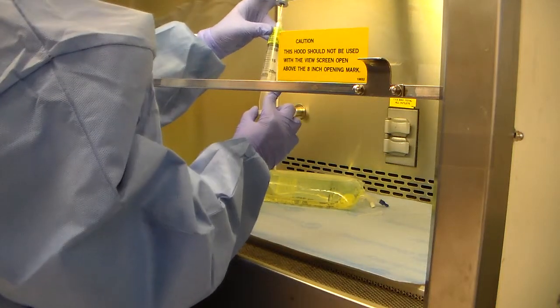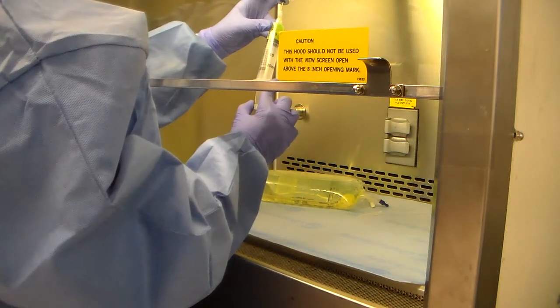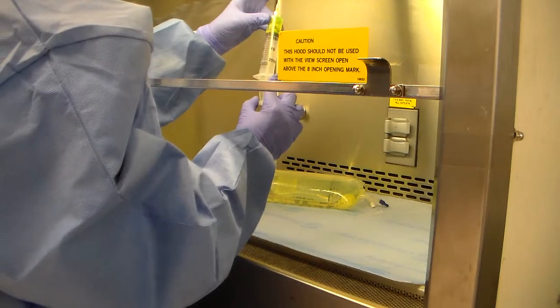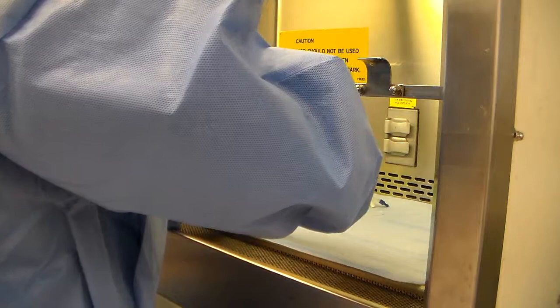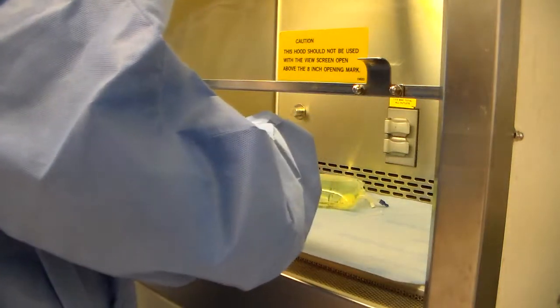We pull back to what we need. Remember, based on my calculations, it looks like I needed 7.5. That's about 7.5. We lock it in place, flip the vial down, and we withdraw air as we're coming out.